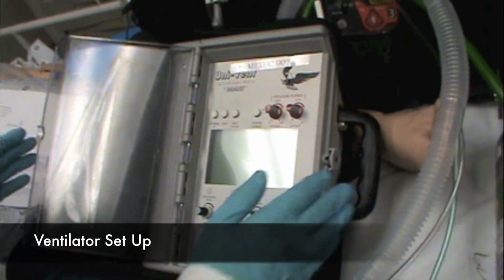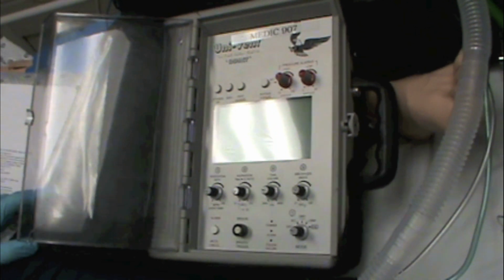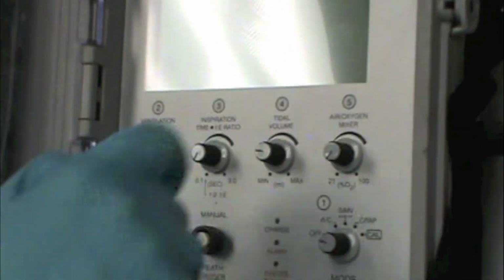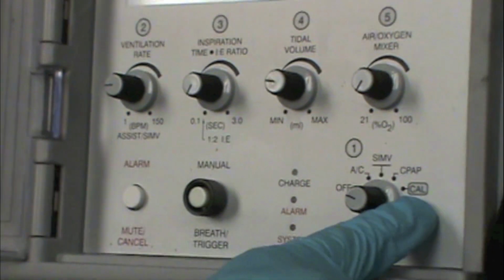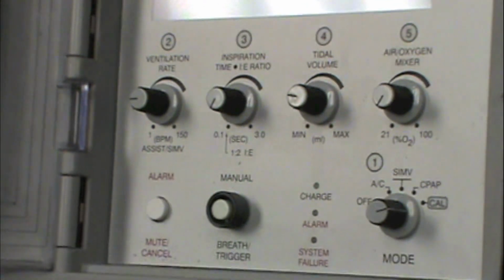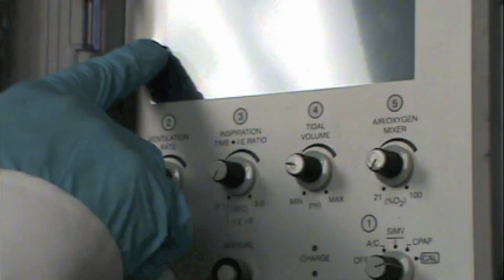So the manufacturer makes it pretty easy for you to be able to figure out exactly what steps you need to go through to start the vent. If you just follow the numbers 1, 2, 3, 4, 5 on the display, when you turn the machine on, the first thing you should do is calibrate it. So you're going to flip this knob all the way over to the calibration feature, and then on the screen it'll say mode cal, and then it'll say cal OK, so now you're good to go.